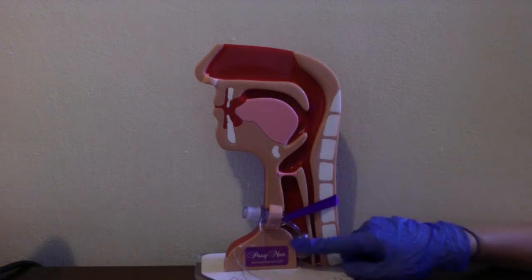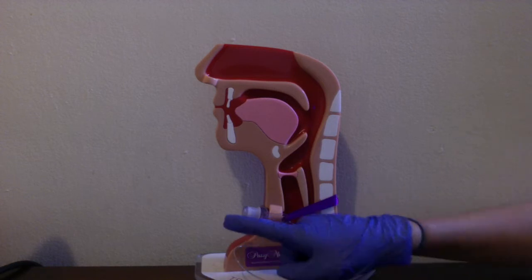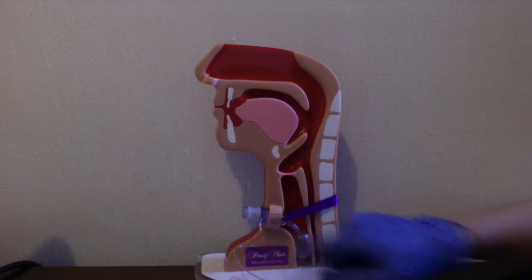This is a tracheostomy tube with a cuff inflated. When the cuff is inflated, air flows in through the tracheostomy tube and into the lungs, and then exhaled air flows back through the tracheostomy tube and out through the tube.